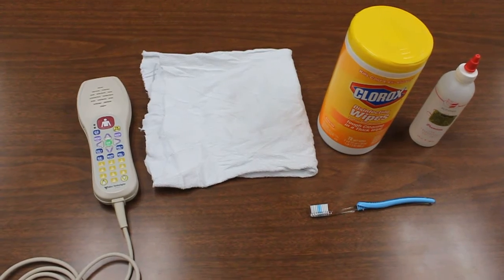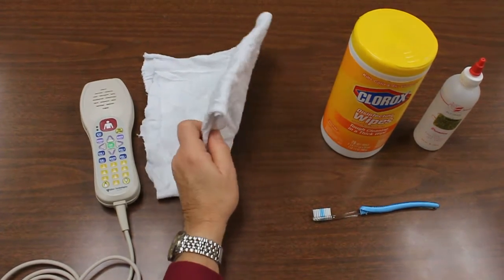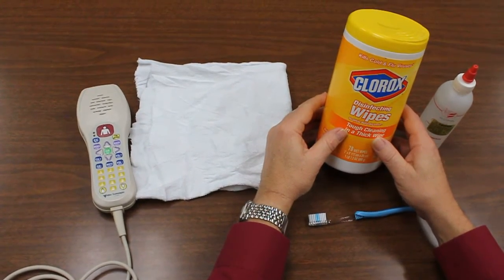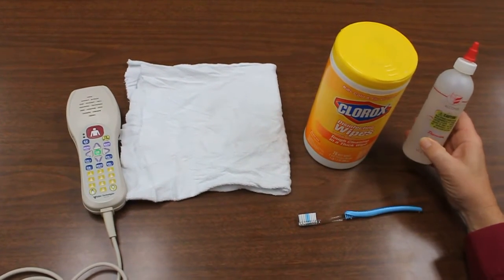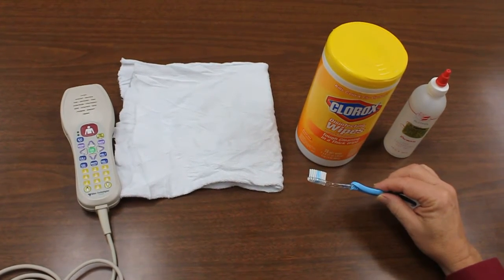The items that you need to properly clean an Anacom MedTech pillow speaker are a nice, clean, soft cloth, a disinfectant of some kind — this may vary depending upon the requirements in your hospital and the protocols required — some denatured alcohol, and a toothbrush or another soft brush of some kind.